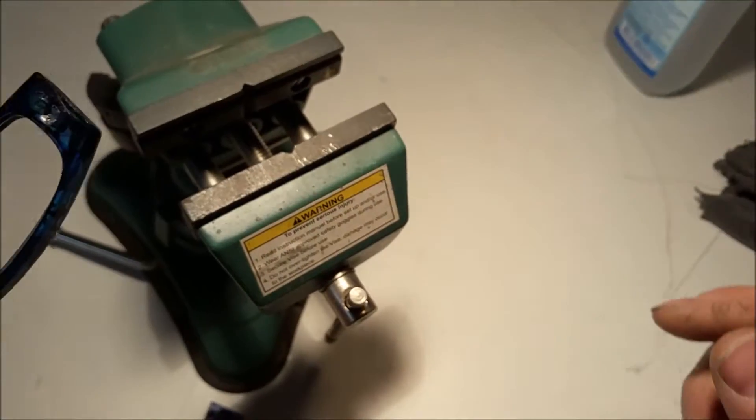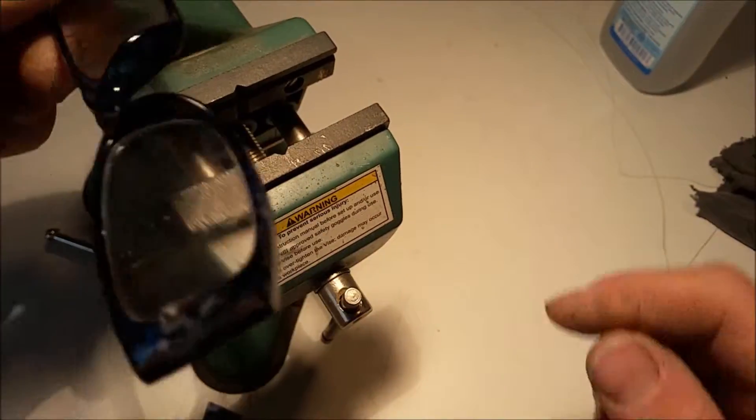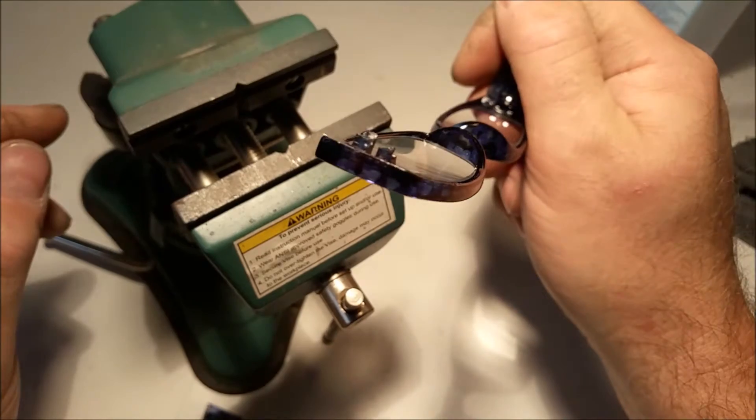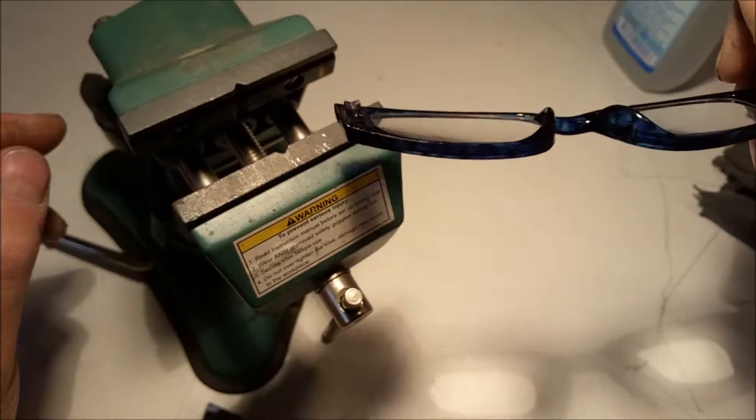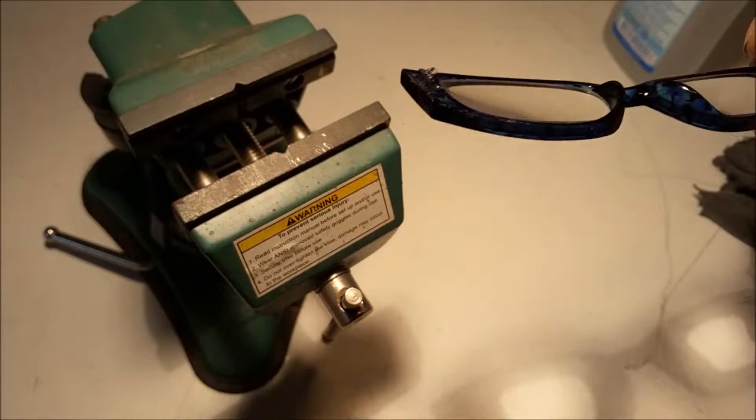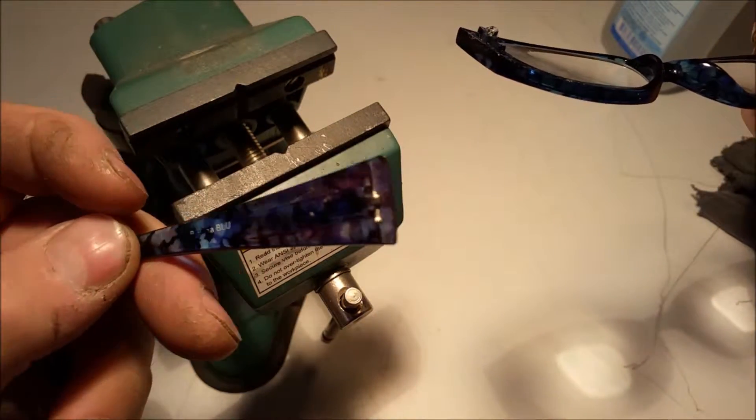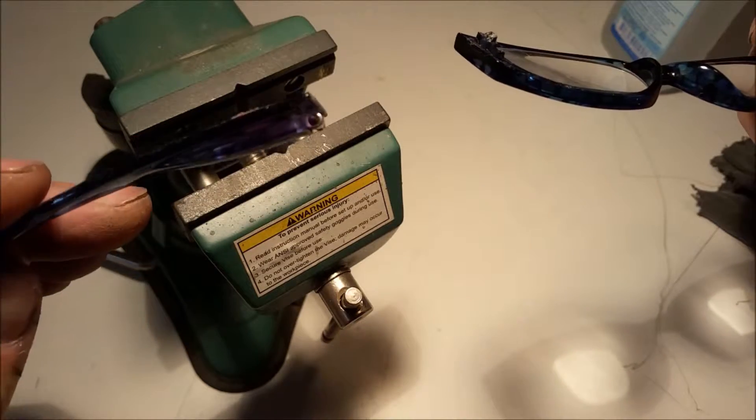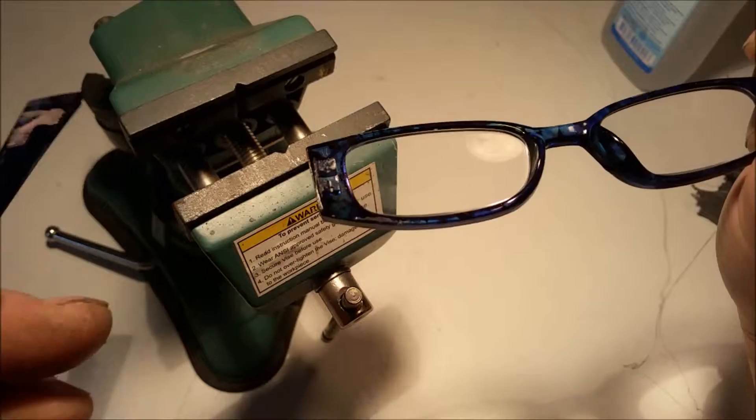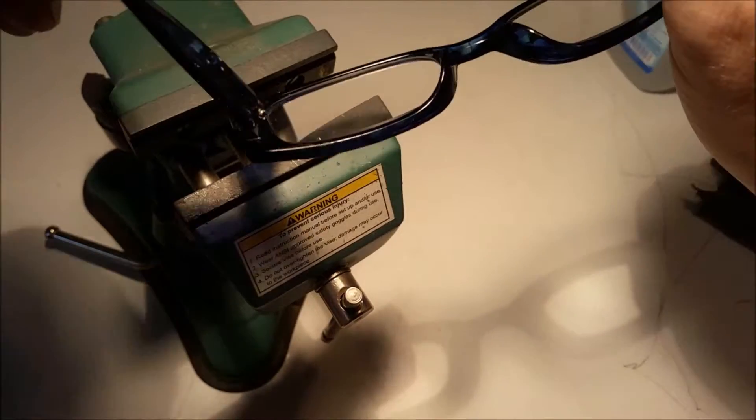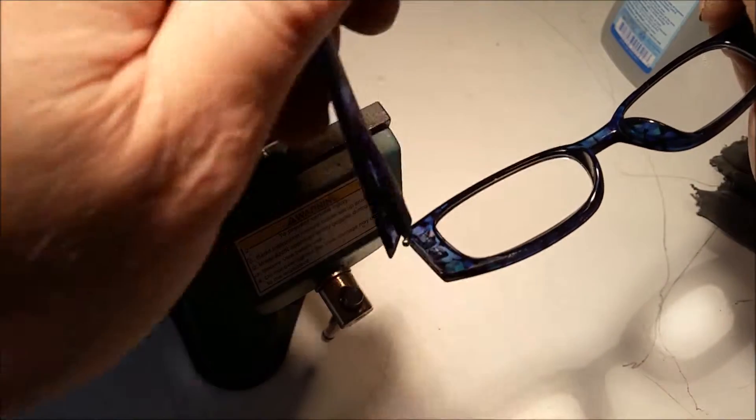But this side is broken. See, there is not even a hole left, but this part is still intact, there is even a screw in there. And how are we gonna do this to put it on and make it function?